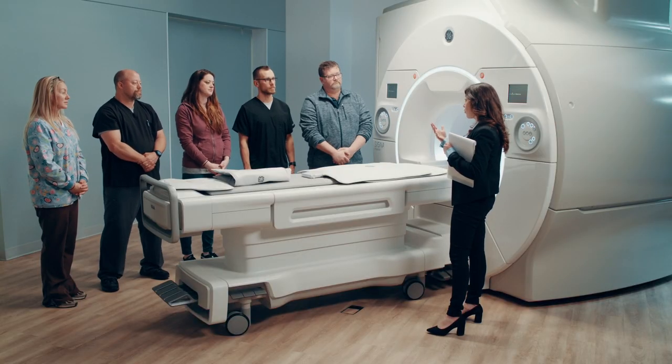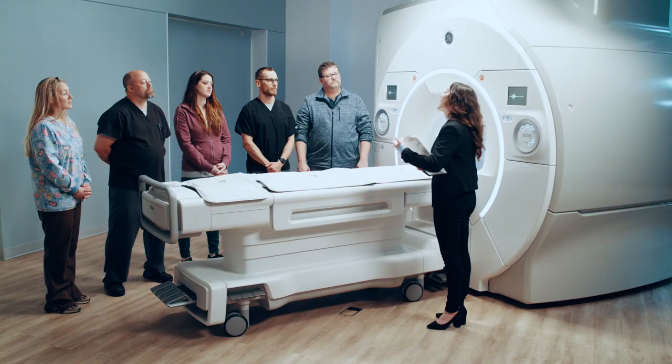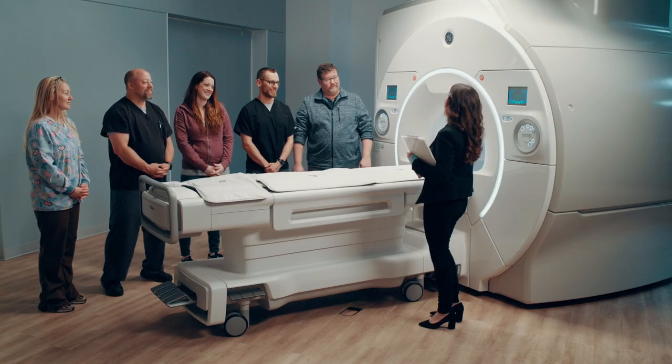You think the radiologist will be excited about this technology as well? Absolutely. Do you think GE is taking the next step in imaging with this coil? I think it helps the hospital, it helps the employees, and it makes the patient feel a lot more comfortable. So on all levels, I think they're really stepping up the game. How soon can I have one of these?